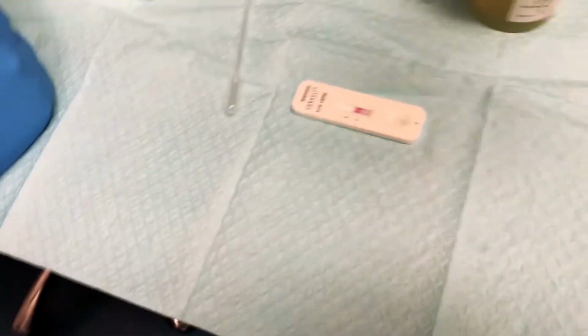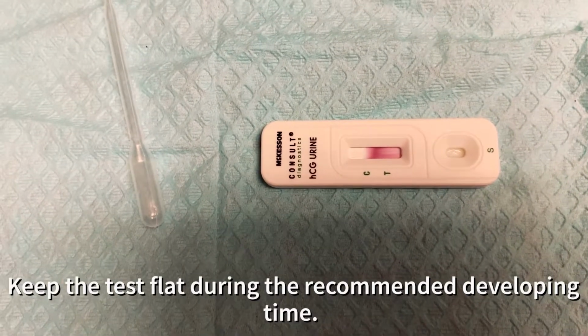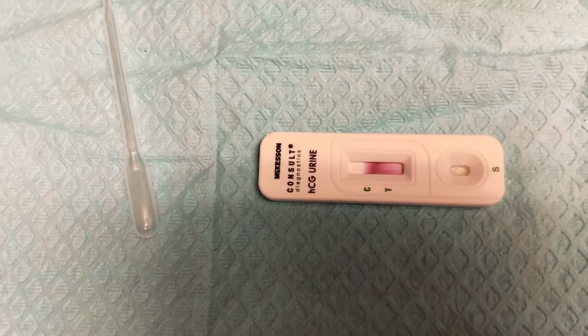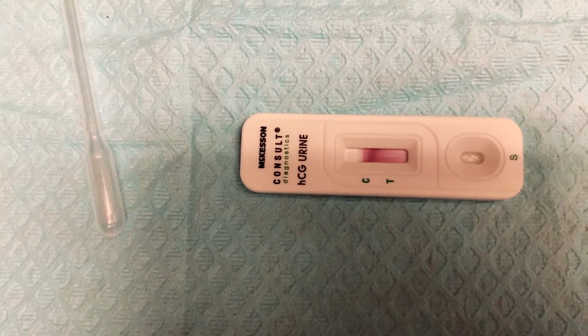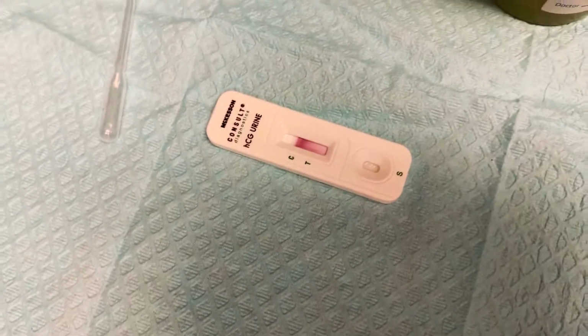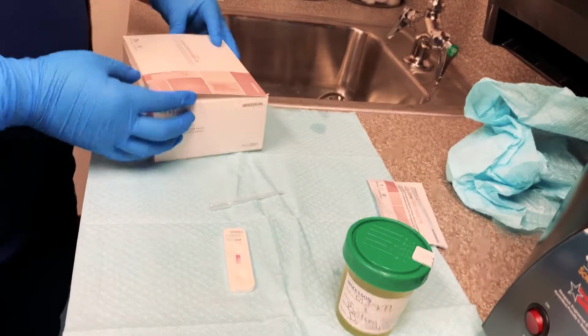So we're looking, it's already reading it. You can already see it's past the T, so it looks like we're gonna have a good pregnancy test. And you can already see 1 line forming at the C. So it looks like we might be getting a negative pregnancy test, but you would have to wait until the full 3 minutes are over before you know the results.